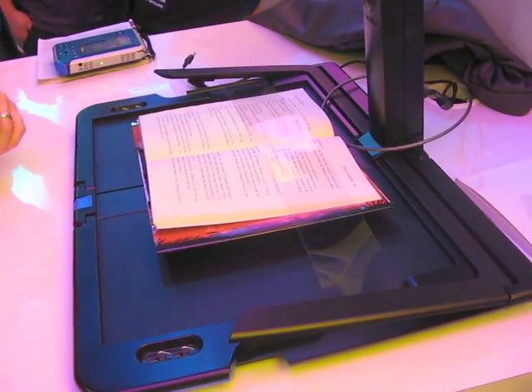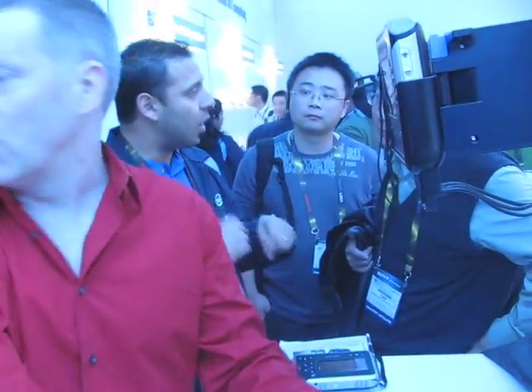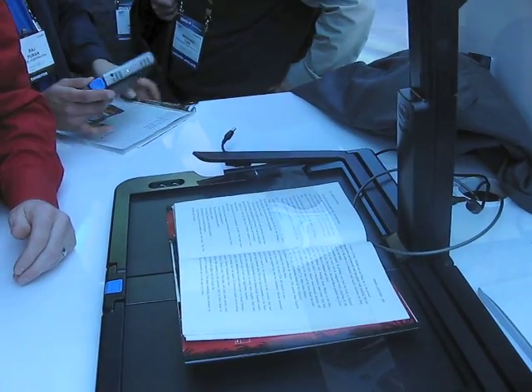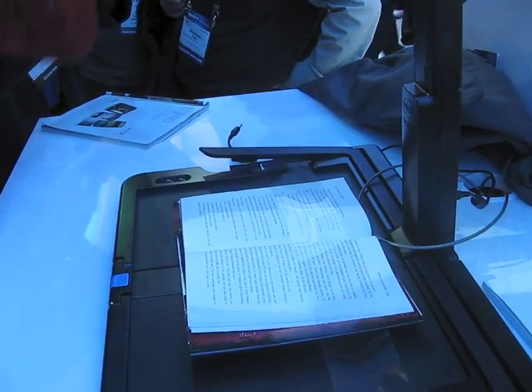What's the average time for converting? About 30 seconds a page is what you should expect. And it's important that I can go off and do other stuff while it's converting, so I just go to the next page because the Atom processor inside is allowing me to do that in the background. I go ahead and shoot it. You'll see there's a lot of glare from all these lights — no problem.